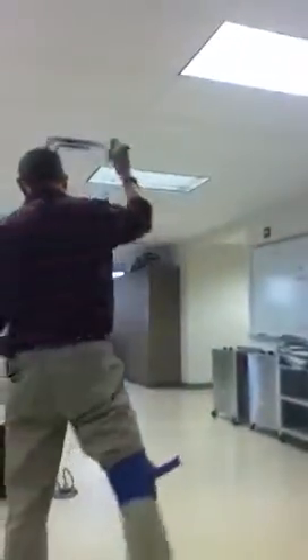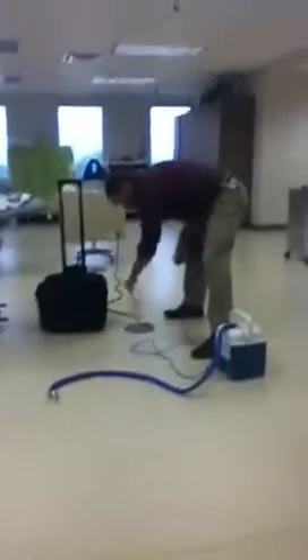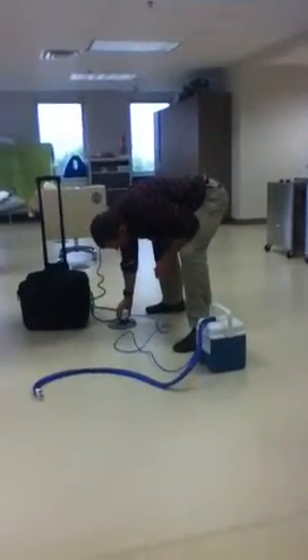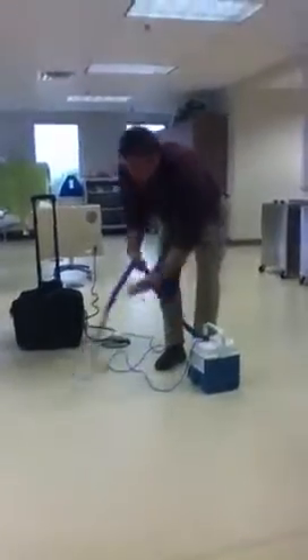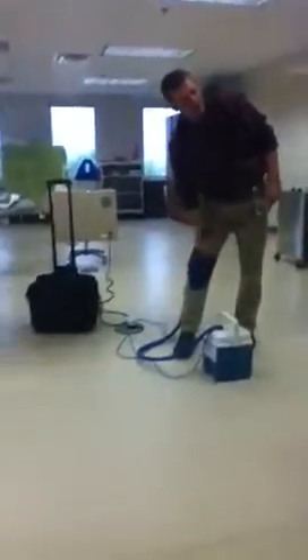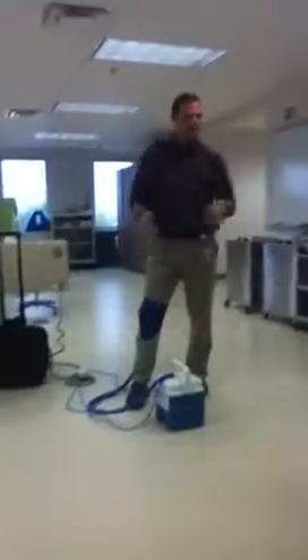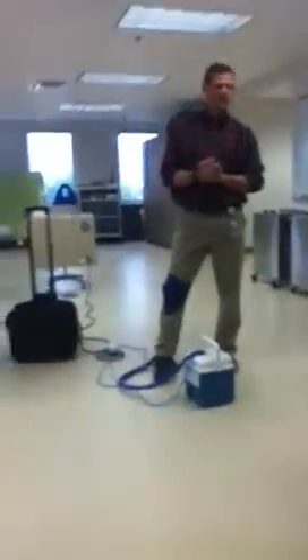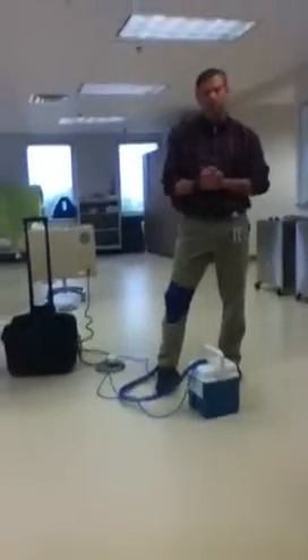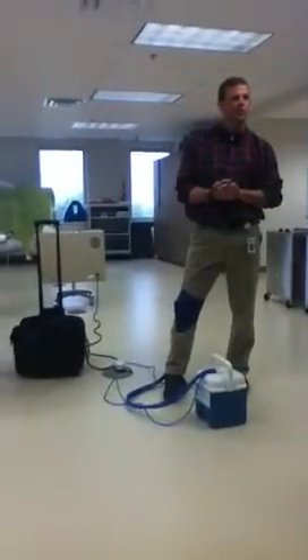This looks a lot like my fish tank pump. All it's doing is just pumping that cold water in, around this and back out, back into there. It's never going to get below freezing because it's water, but it's going to be pretty cold — about 33 degrees.